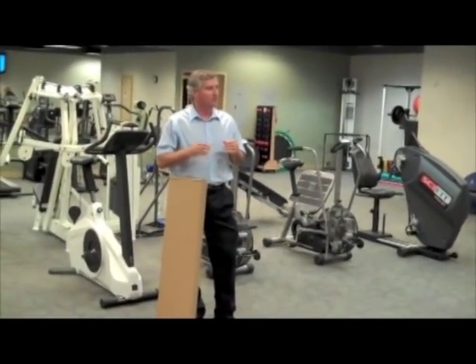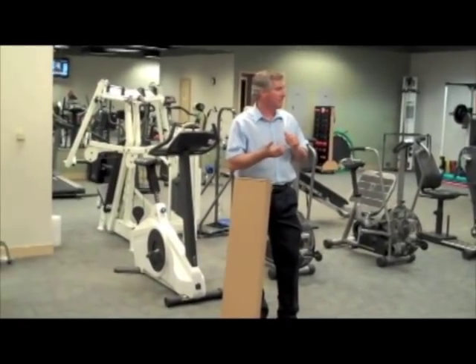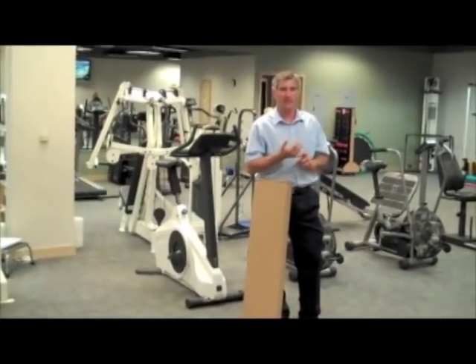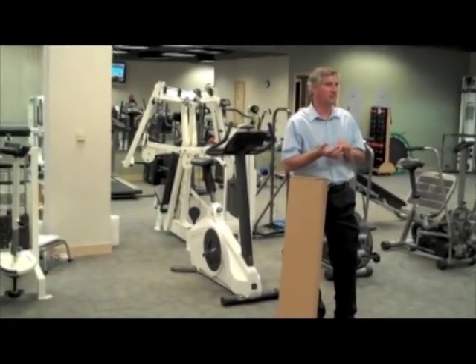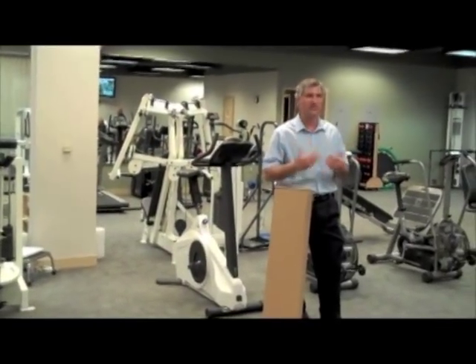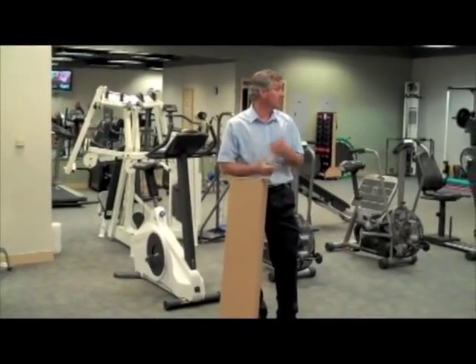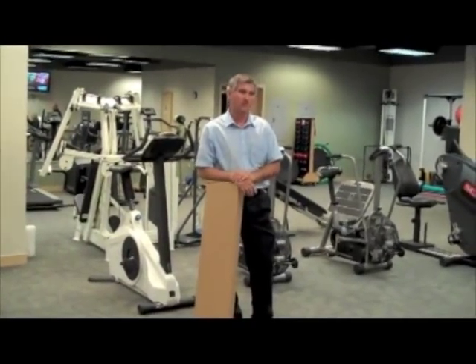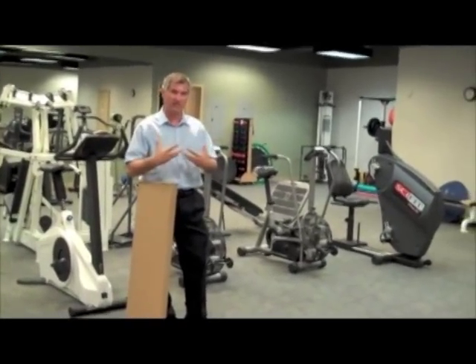The things I want you to notice are that it takes a little getting used to. But in talking to Dr. Bielema and several other doctors and therapists, typically you would send somebody to get training on crutches or knee walkers anyway, so this isn't terribly different than any of those. Our experience is it takes anywhere from a few minutes to up to an hour or so for somebody to get used to using it, and part of that is just adjusting it and explaining how it's used.